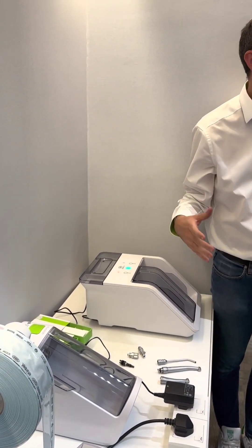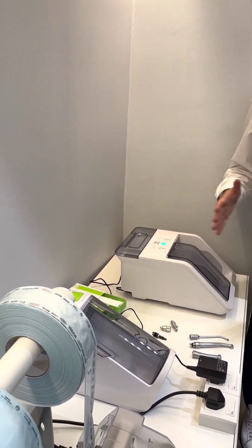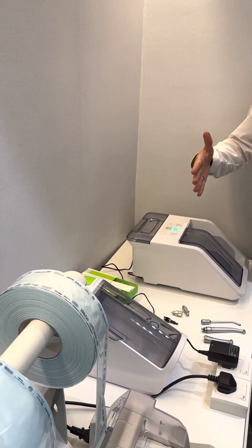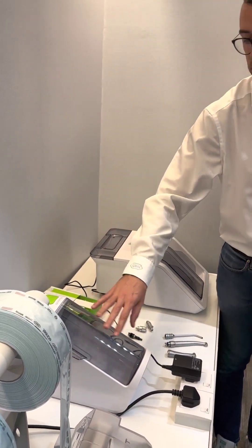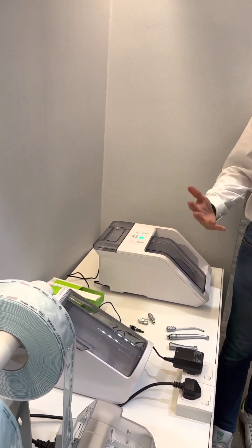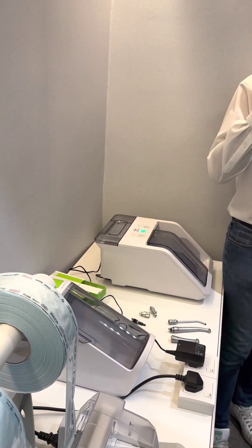If they have less space, other devices for reprocessing or lubrication of the pieces are generally bigger, maybe with more ports, and they take a lot of space. This is really compact and you can use it in different places — places also without electricity.